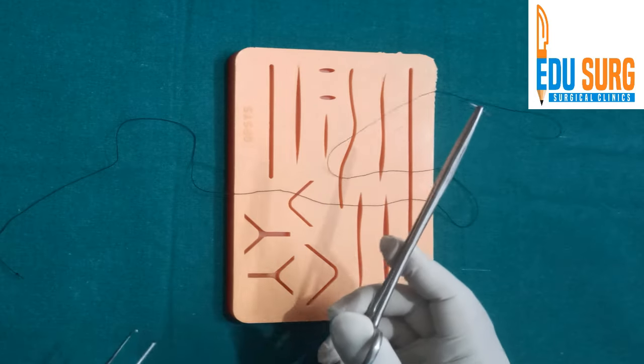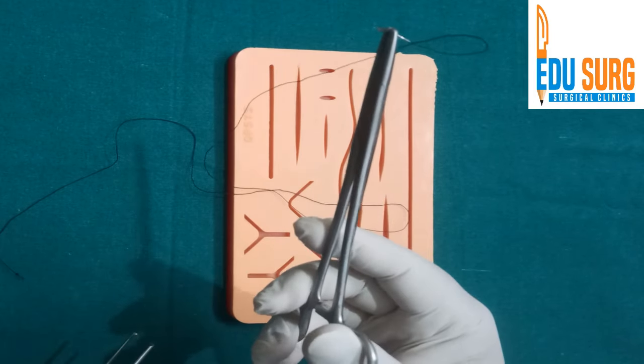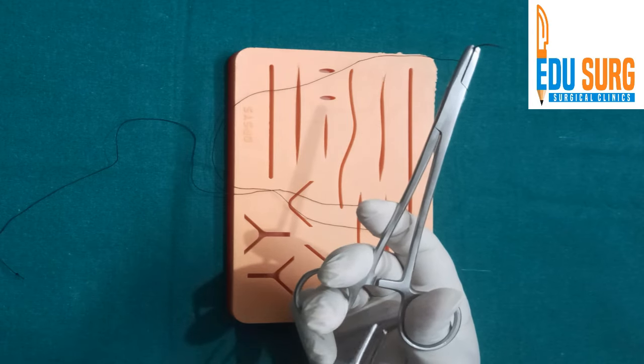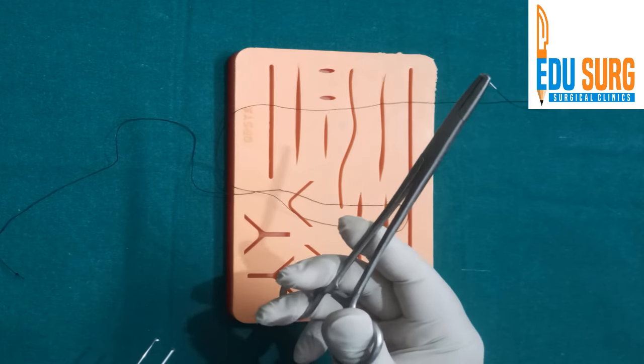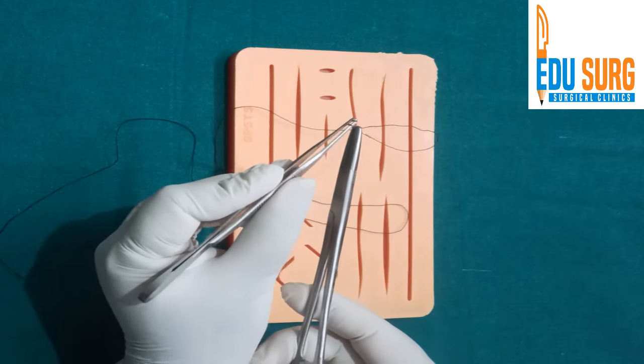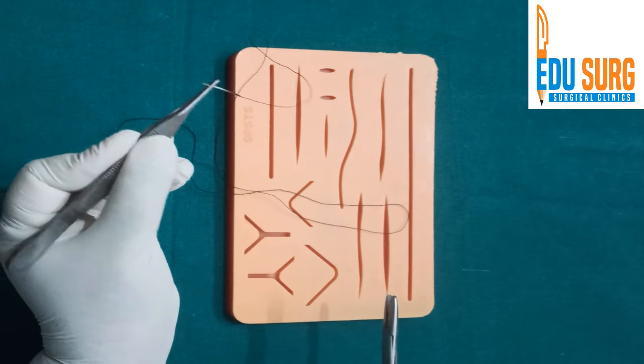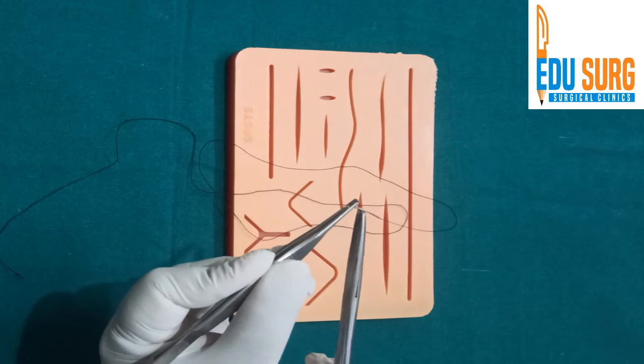Using the locking, usually we use one or two locks. If you use all three, your needle can break. So this is how you can load it.